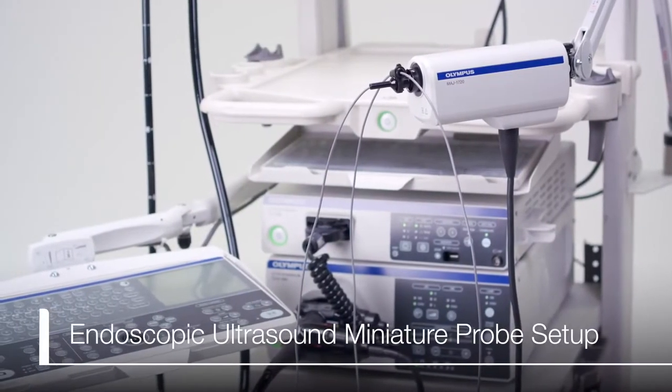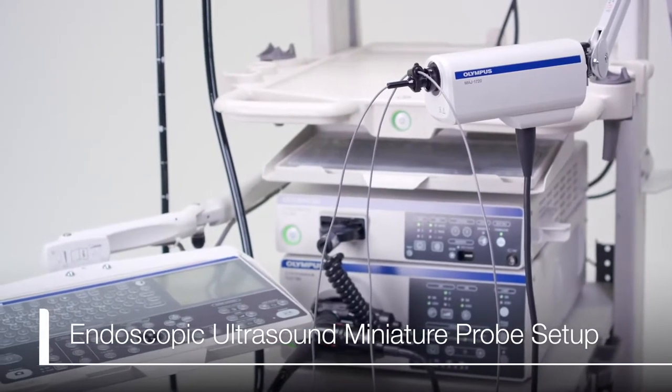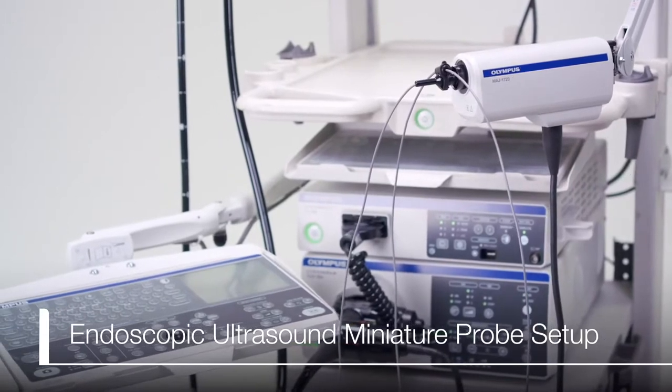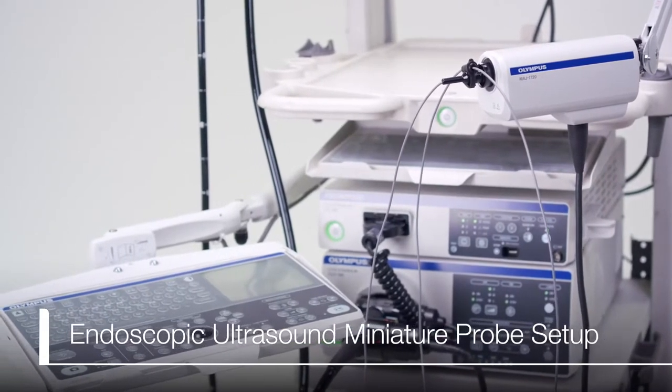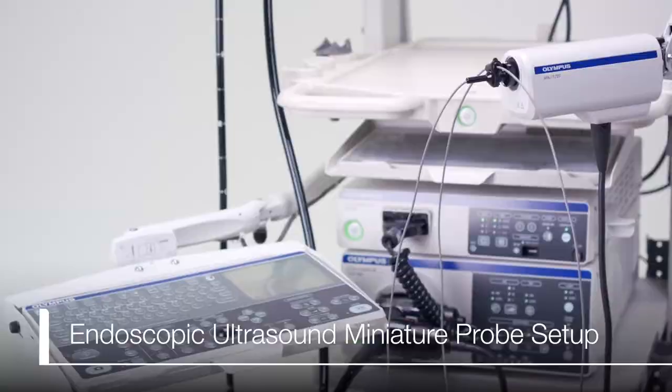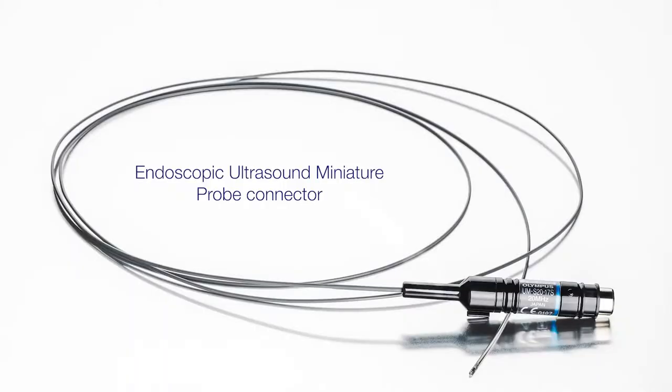This video will review endoscopic ultrasound miniature probe storage, connection to the MAJ1720 probe driver before a procedure. Let's start by looking at the proper way the probe should be stored.